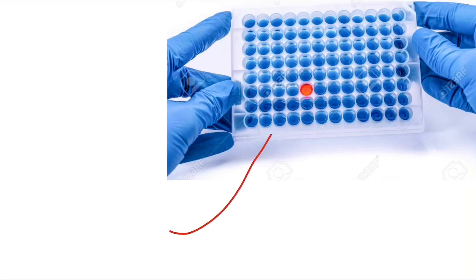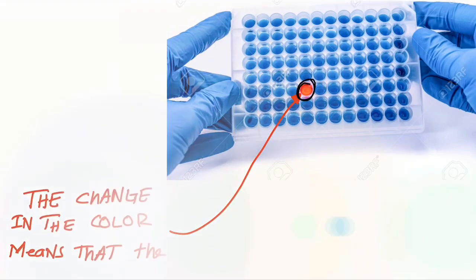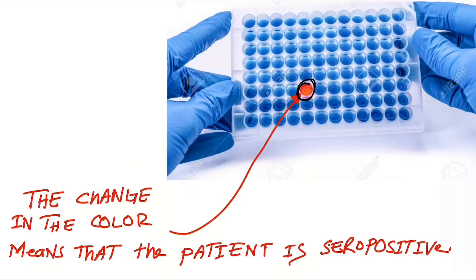Look at the red color in the kit. This change in color indicates that the patient is seropositive and he is affected.